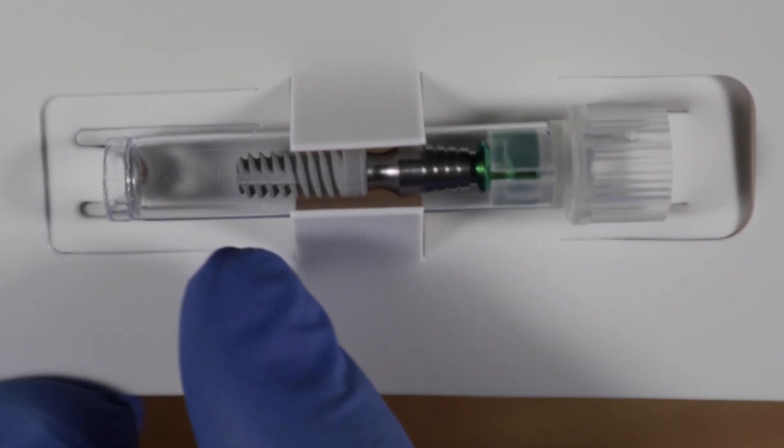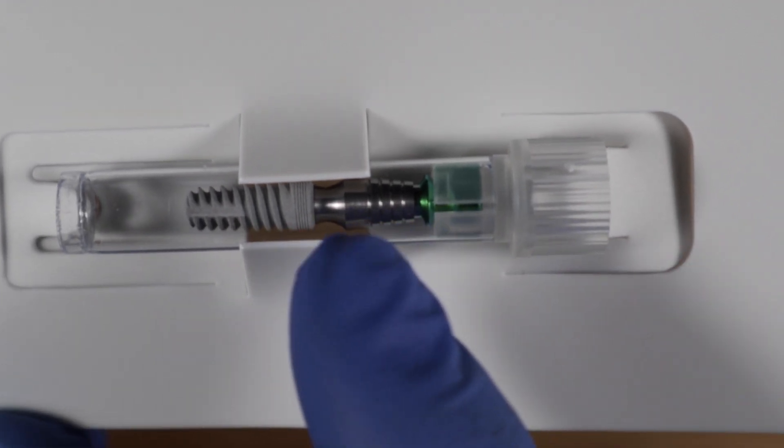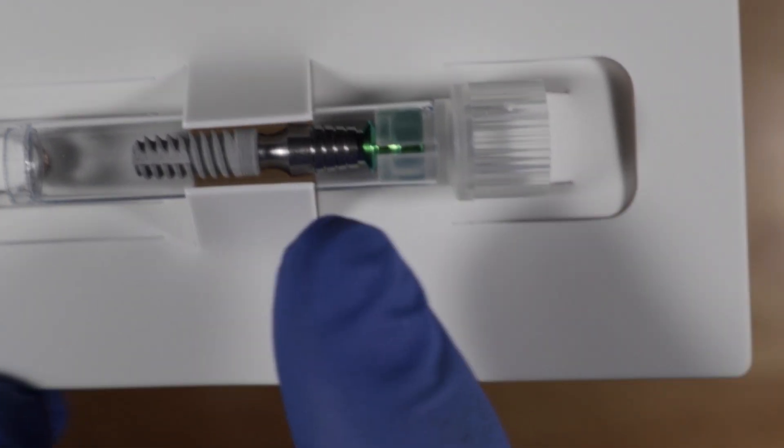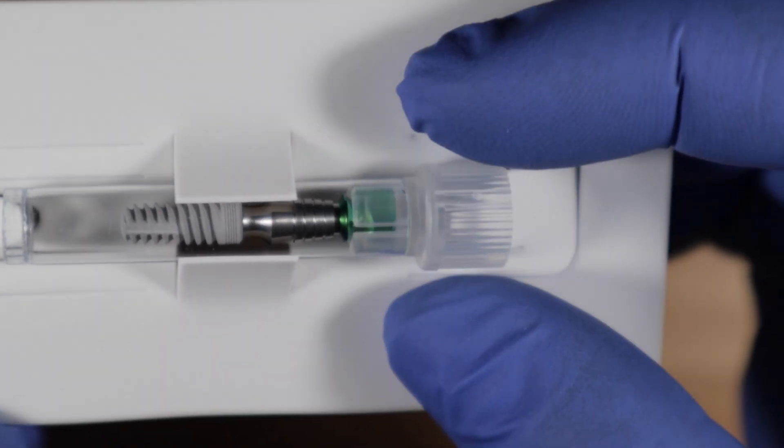This is what's inside. It's got the implant right here attached to a transfer. So this is called an implant transfer and it also comes with this little thumb grip right here.